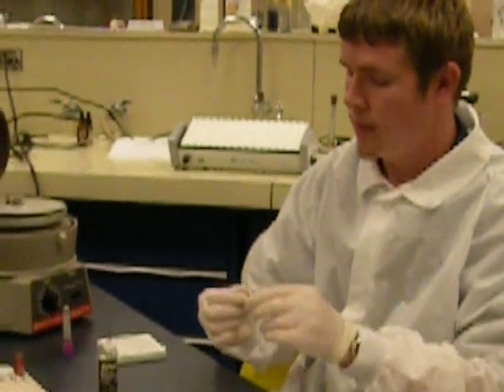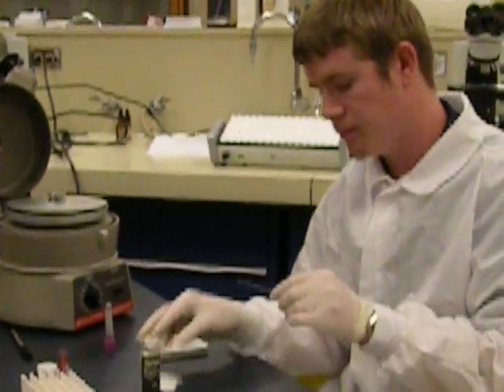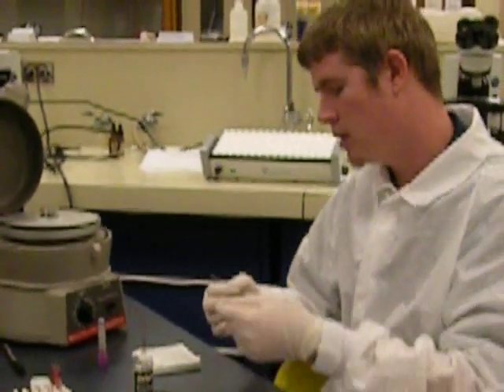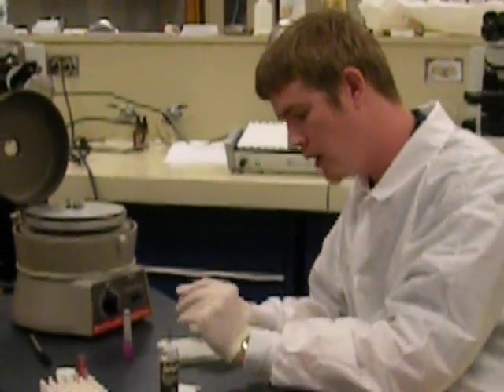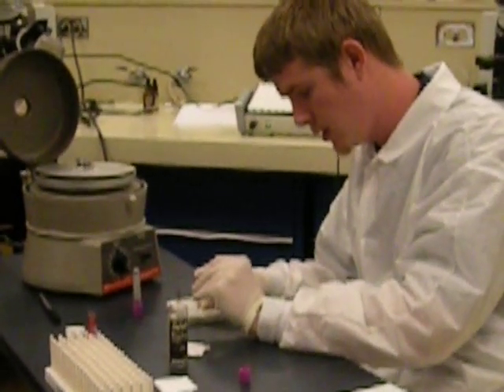After you get the blood into the tube, you're going to want to go ahead and wipe off the outside layer to get all the blood off the tube itself. Then you're going to want to place your finger over the end so that the blood doesn't move around, and stick one of the ends into the clay sealer.